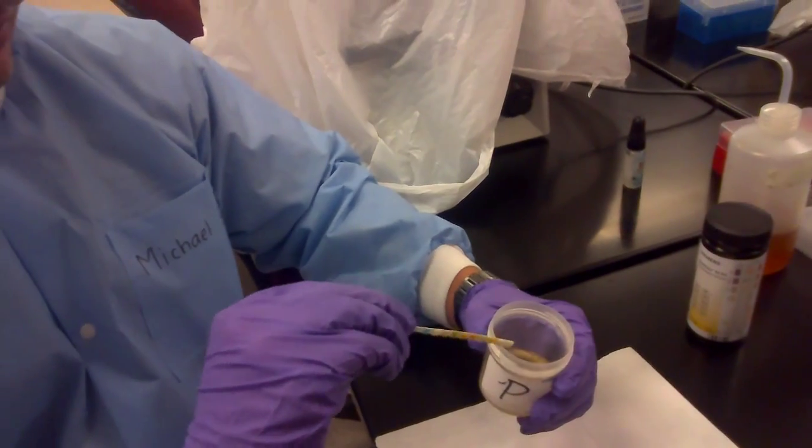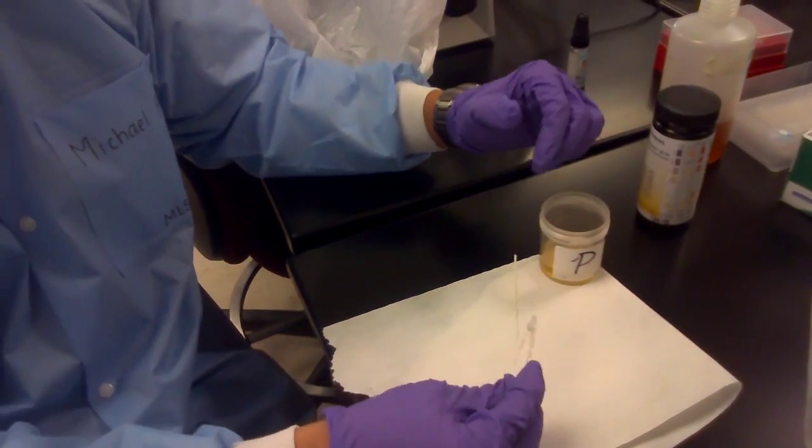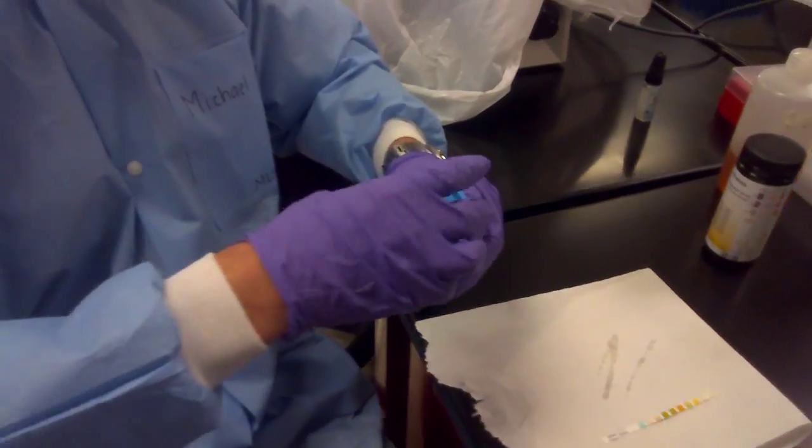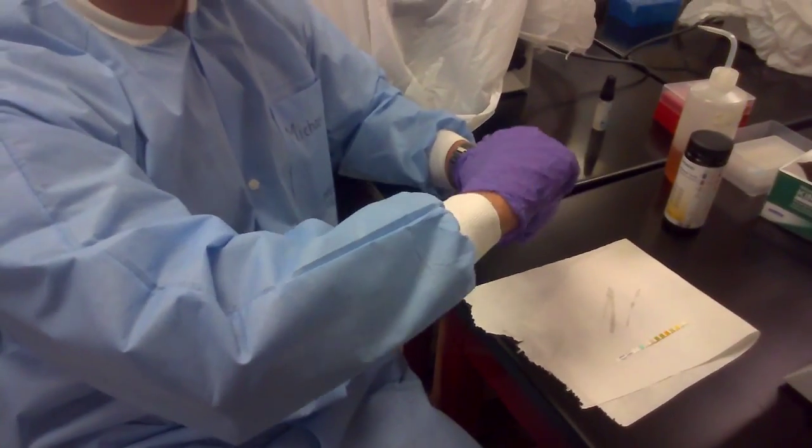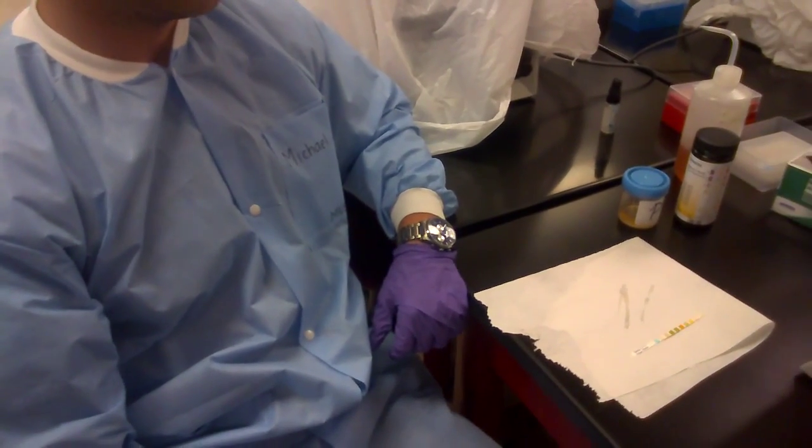He is going to slide the side down the top of the bottle, and then blot the sides of the dipstick. And now we are going to compare results.